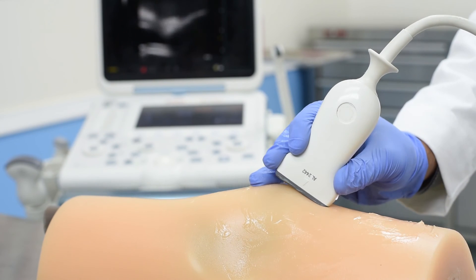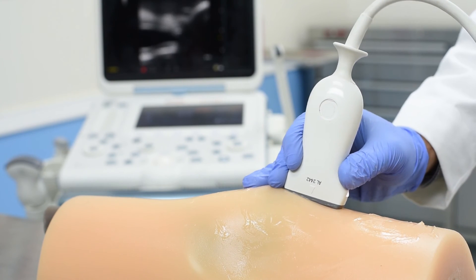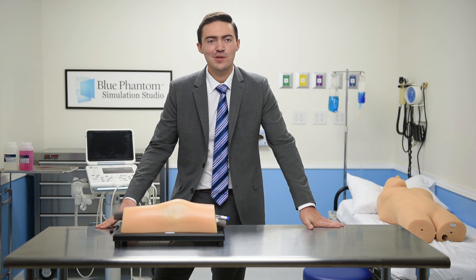All of the anatomy allows for you to accurately practice the lateral mid-patellar approach for ultrasound guided knee injection. We are confident that this model will help you in your pursuit of improving patient care through effective training.